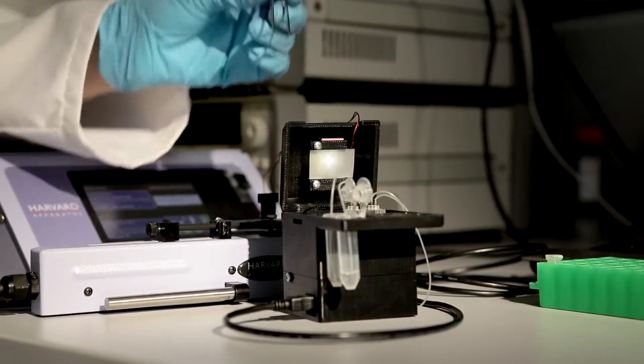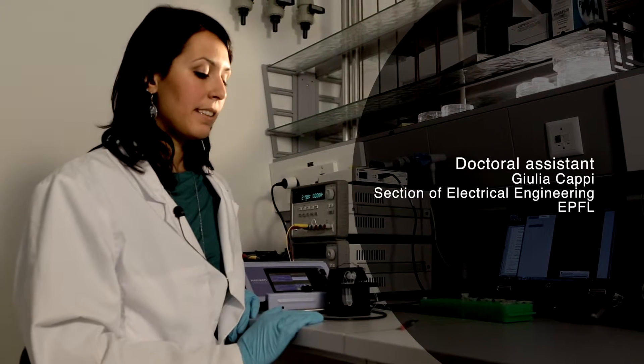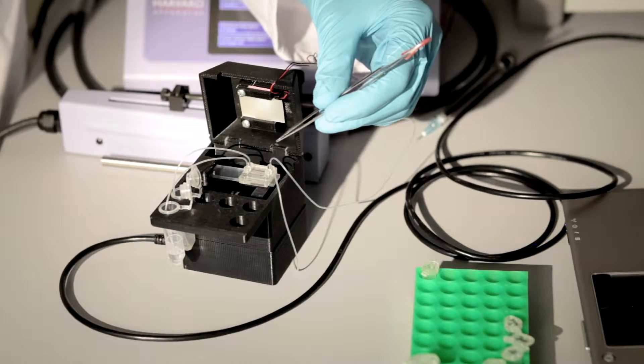This system is able to measure the concentrations of drugs in blood samples directly, and it allows us to display the results in real time.